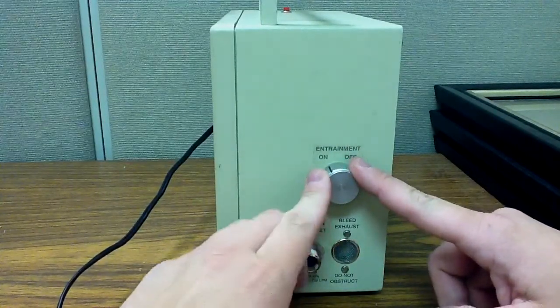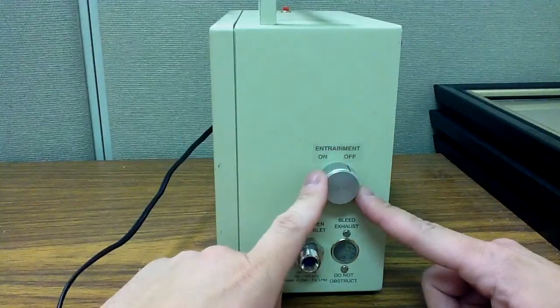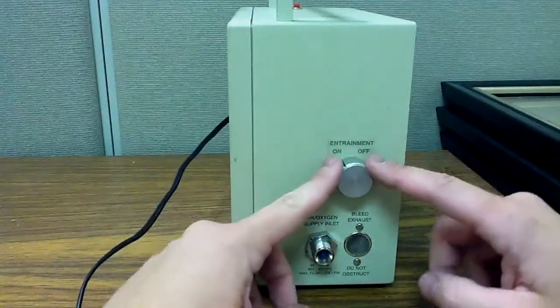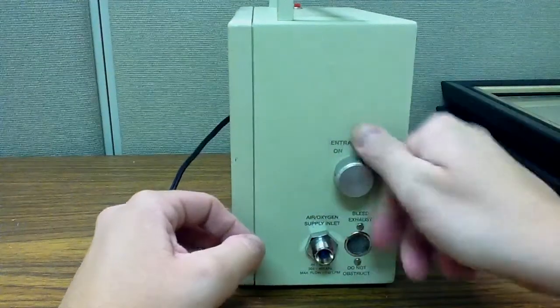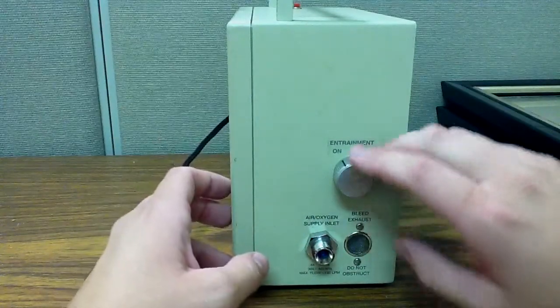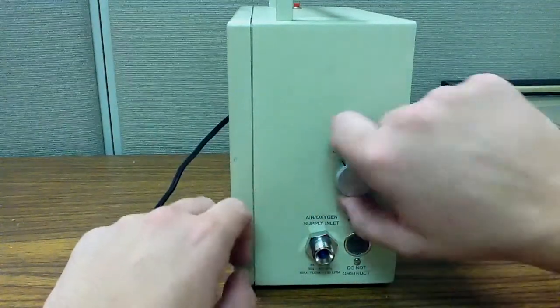So with this ventilator, we only have two selections: your patient either gets 100% oxygen or they get 50% oxygen. So 100%, 50% to 60%, and that's all they get. So we're fairly limited on our FiO2 selection.